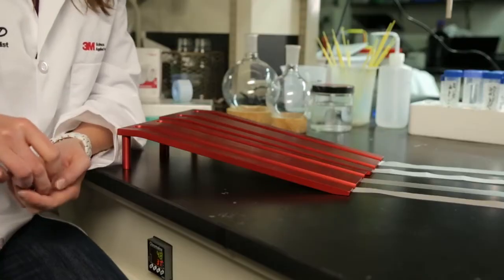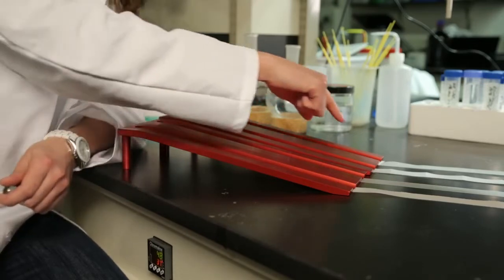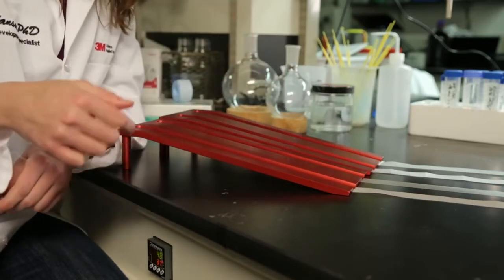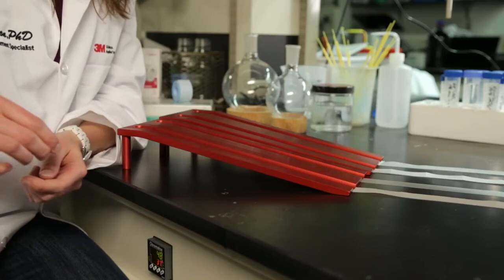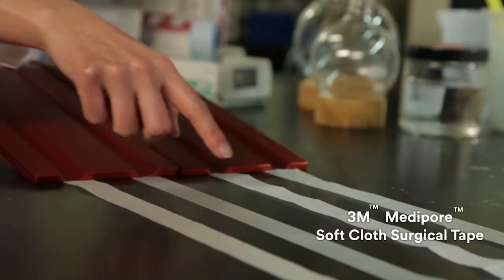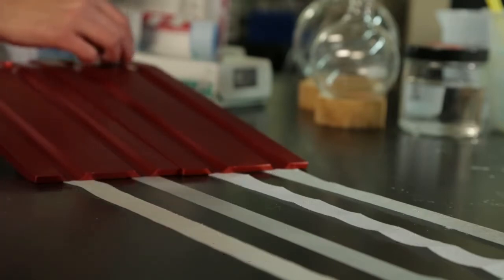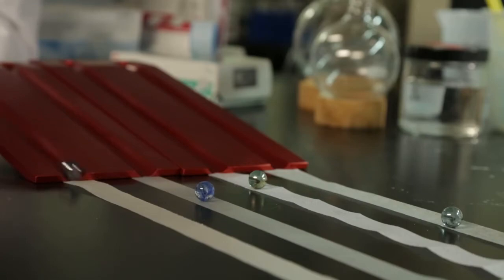This is the rolling tack test. Here we have a track, which you roll a ball down to the adhesives at the end of the track. The stickier the adhesive, the shorter the distance the ball will travel. We have 4 different acrylate-based adhesives. Here we have Micropore, Medipore, Transpore, and Durapore. As you can see, though they're all acrylate-based, they have different adhesion properties.